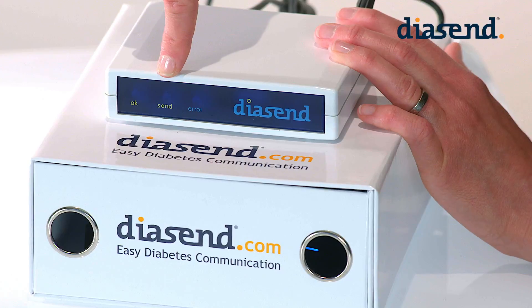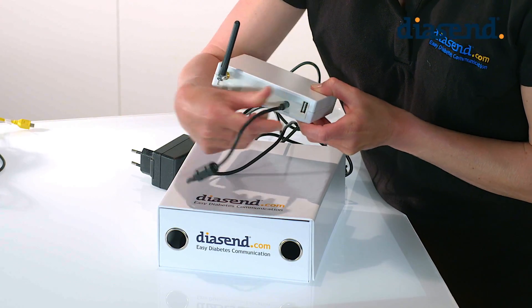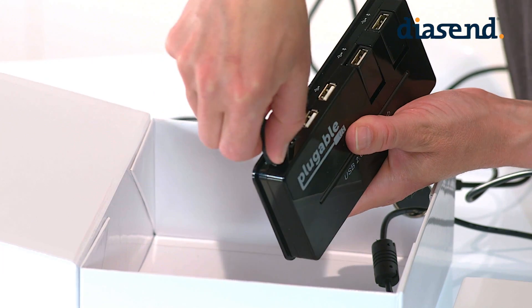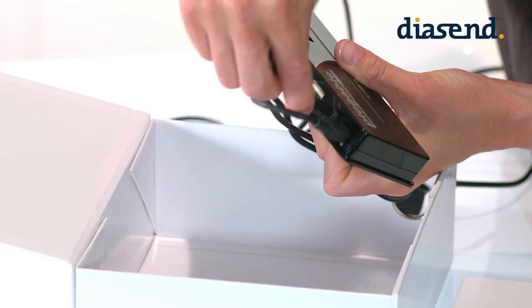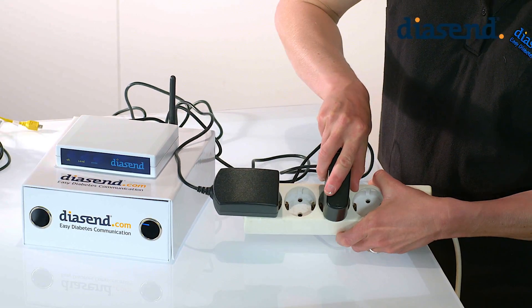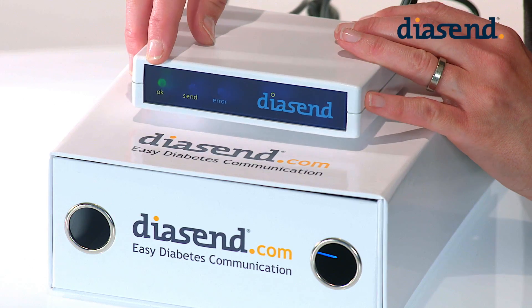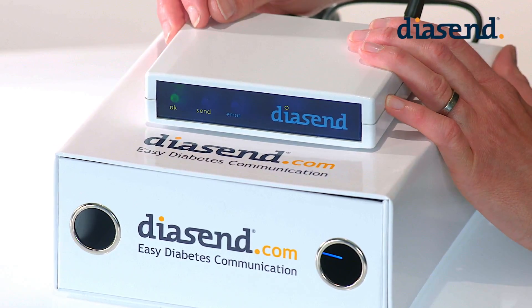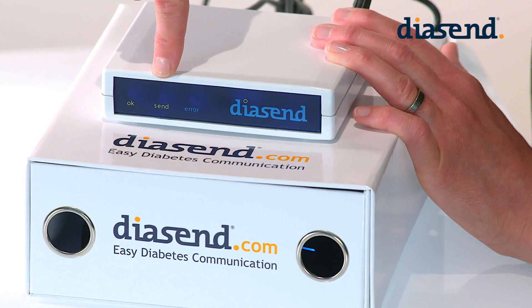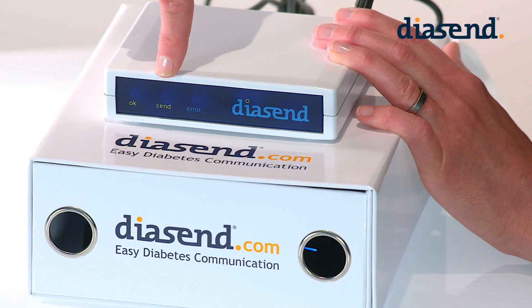Let's recap. Plug in the one pin cable into the transmitter box to power the transmitter. Also ensure that you plug in all the cables for the USB hub and plug this into a power supply as well. The transmitter's green light will come on showing that it's on and it's starting up. Once the blue send indicator is flashing intermittently it means you can start uploading devices.